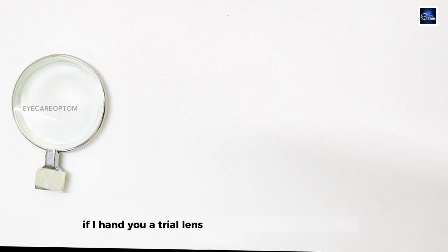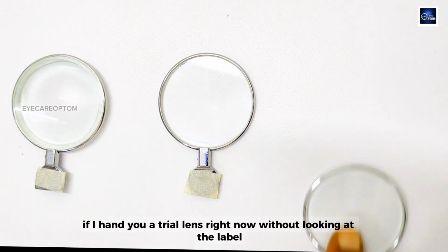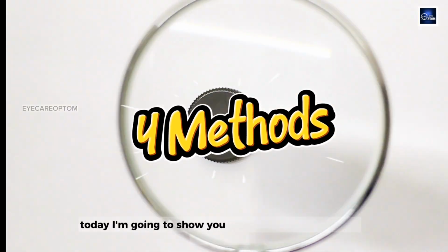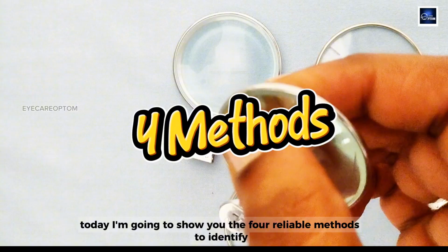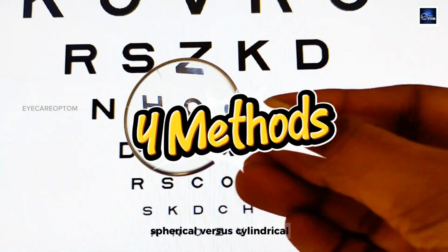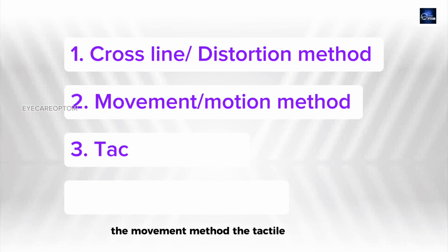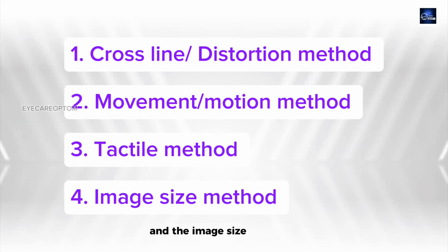If I hand you a trial lens right now, without looking at the label, can you tell me in 5 seconds whether it is spherical or cylindrical? Today, I am going to show you the 4 reliable methods to identify spherical versus cylindrical: the cross-line distortion method, the movement method, the tactile method, and the image size method.